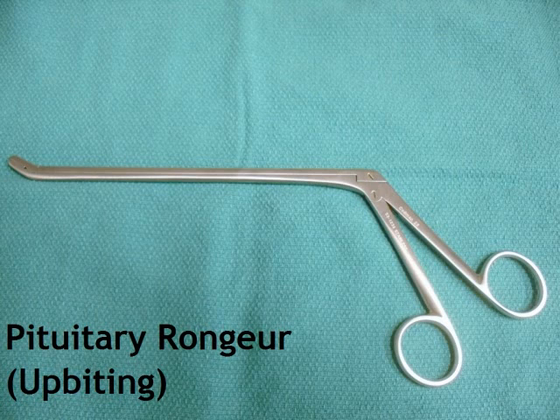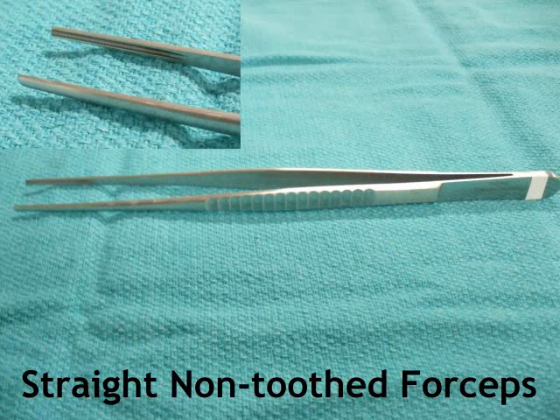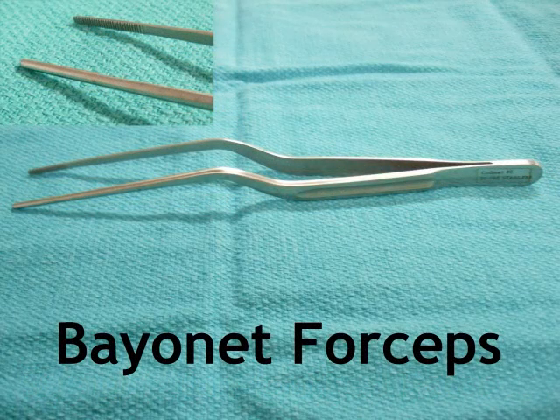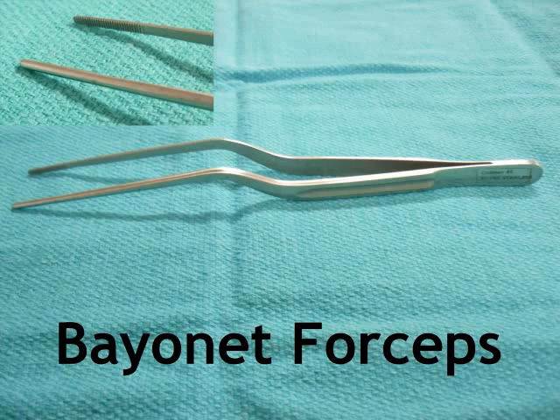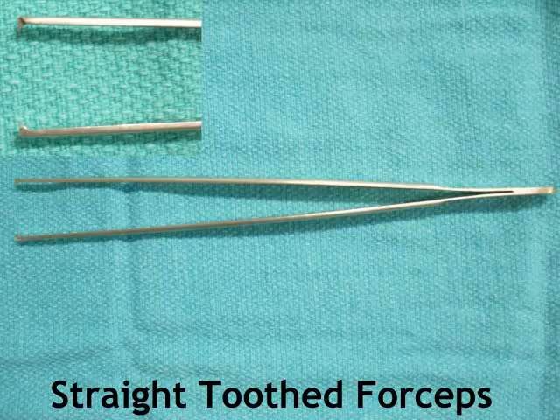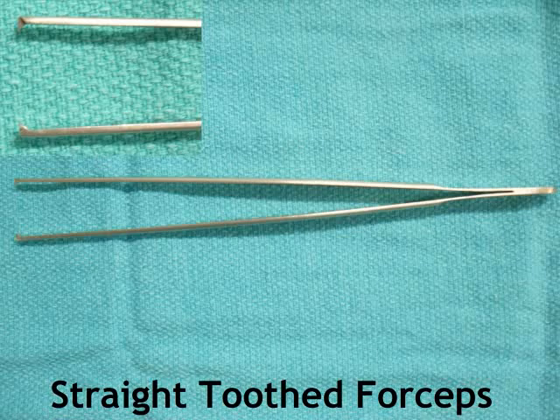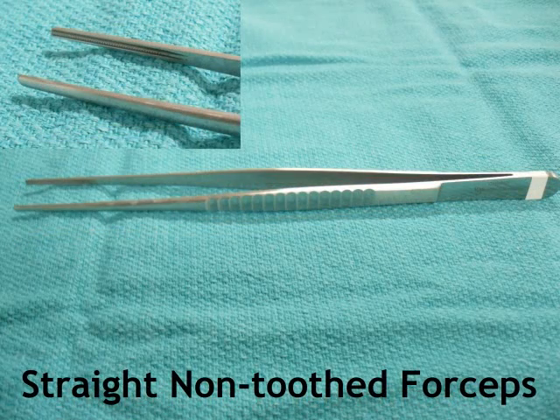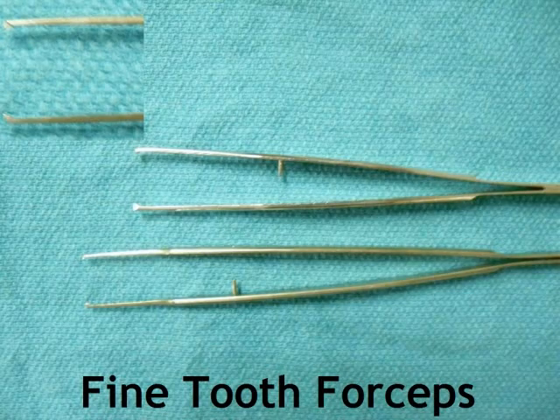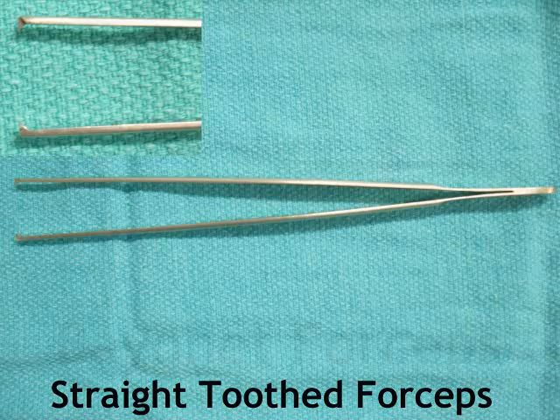Let's look at the forceps. They come as straight forceps as well as those with an awkward shape referred to as bayonet forceps. They are also named according to the teeth, in which case you have the toothed and the non-toothed forceps. As a result, the surgeon could request a non-toothed forceps, a toothed forceps, a straight toothed forceps, or a bayonet forceps.